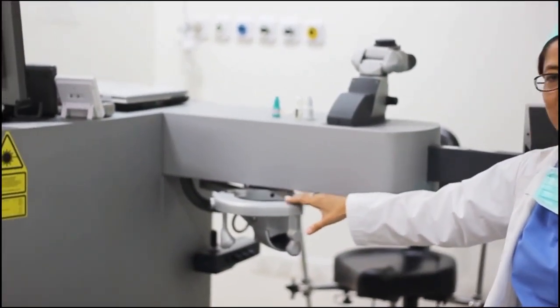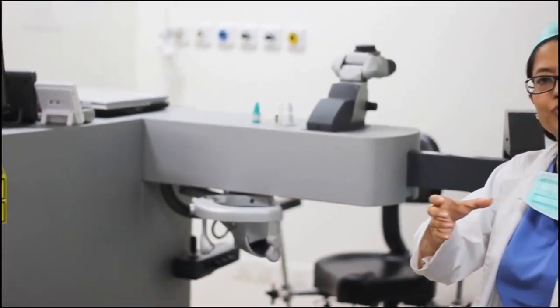All the advanced machines also have an eye tracker. Suppose there is a micro movement of your eye, then the machine can re-adjust itself and give you the exact correction on the LASIK. So the whole procedure, as I said, takes around 10 to 15 minutes.